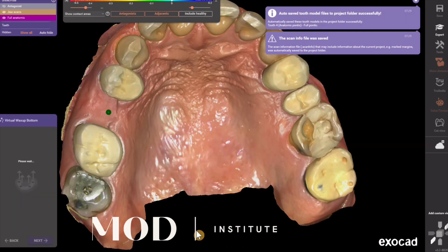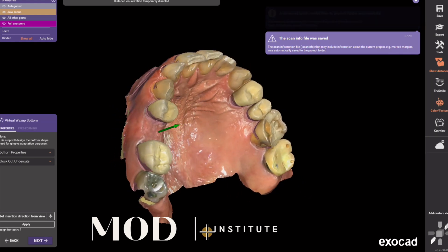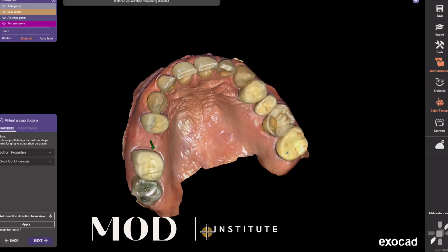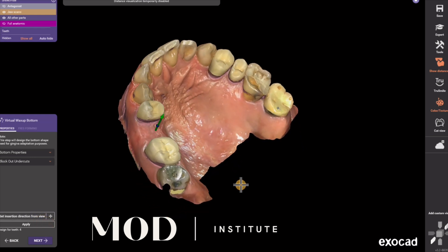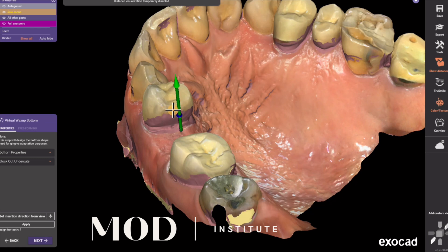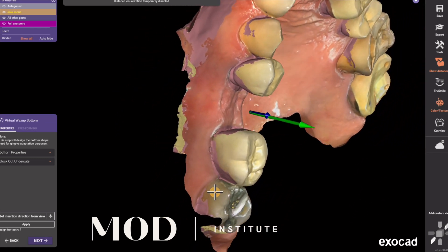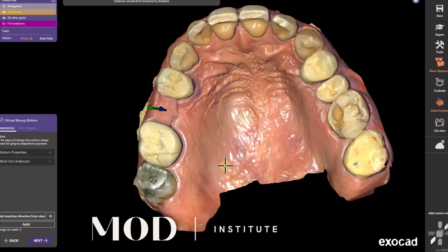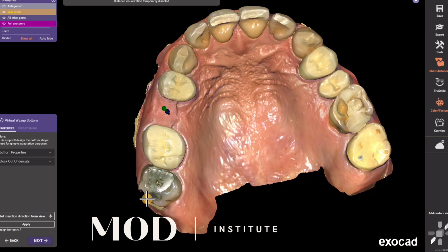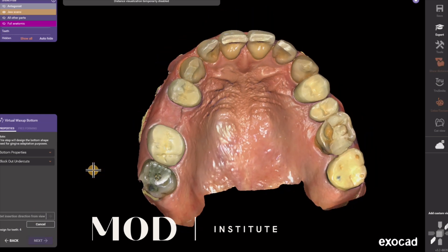Now we're going to be off to the tissue. For the tissue, we're going to pick our path of insertion by rotating the model to an ideal survey line. The survey line is that salmon colored line. Hit set from view to change the survey line to whatever direction you were looking at. That green arrow is going to be the path of insertion. On your guide planes, you want no block out wax on the coronal portion of the guide plane so you can have a seal there.